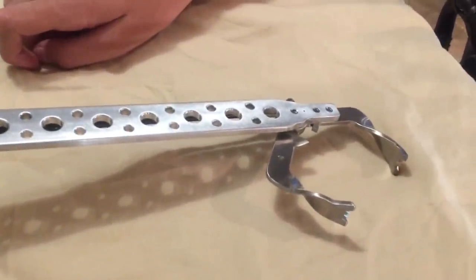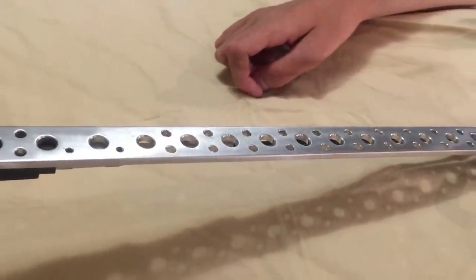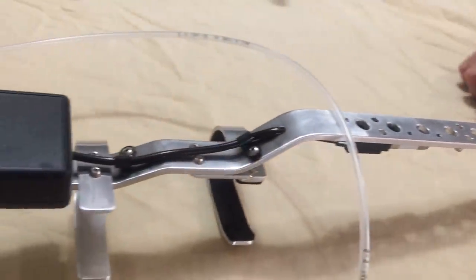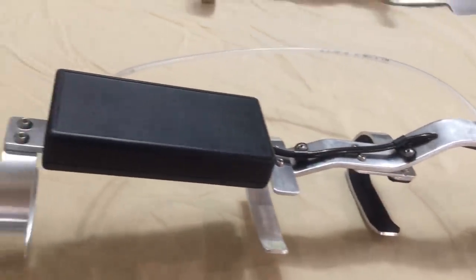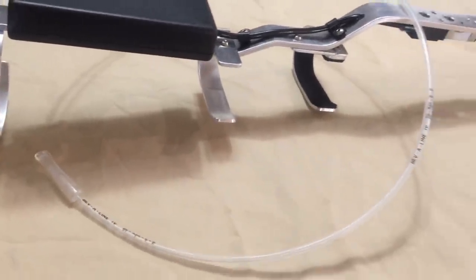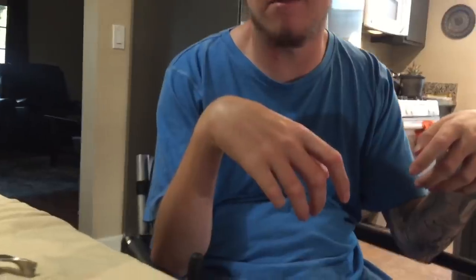So this is my new tool that I got from QuadTools.com and it's called a Sip and Puff Reacher. They make two different kinds on the website: one is with a motor and battery, which is the one I have, and the other one has no battery and that one is for people who have wrist function or tenodesis.